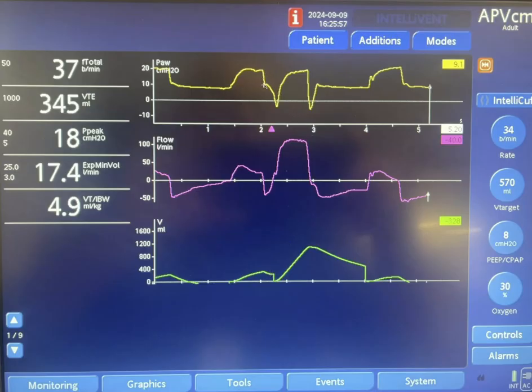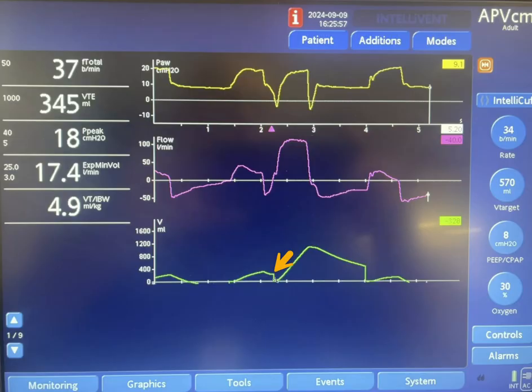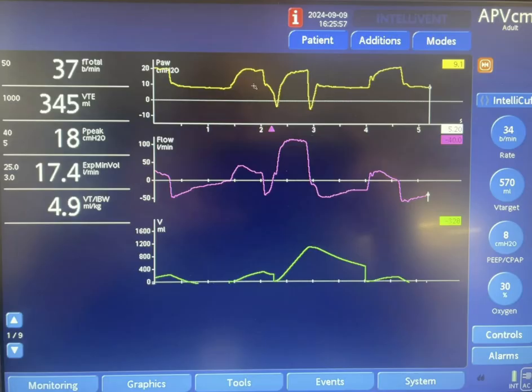Expiration starts — you can see the pressure is released and the flow goes to negative expiratory flow. The patient started to exhale and the volume started to go down. However, the patient pulled down the pressure here — this is an inspiratory effort by the patient that resulted in a cessation of expiration. We cut expiration short; this is the start of inspiration before the lungs completely emptied. This inspiratory effort triggered the ventilator once more, however it did not occur within the first breath, so it cannot be called double triggering. This machine breath is triggered by time.